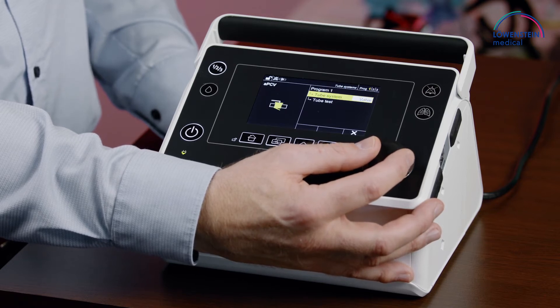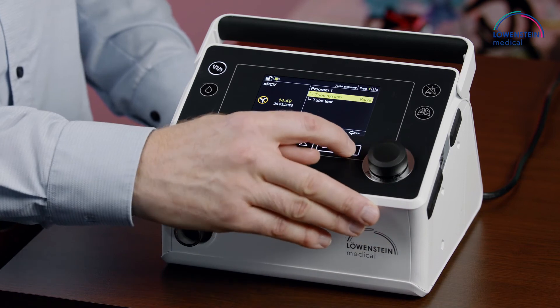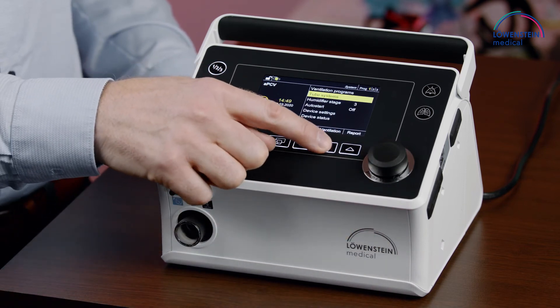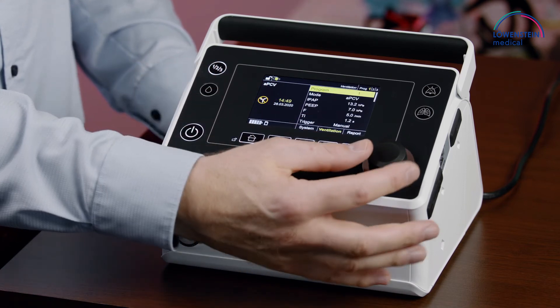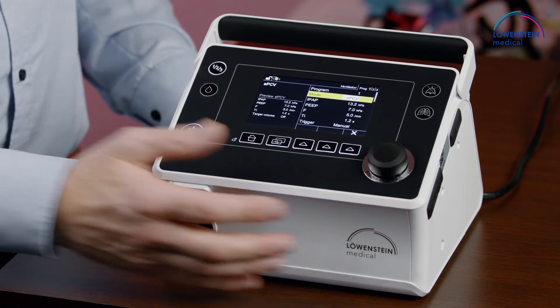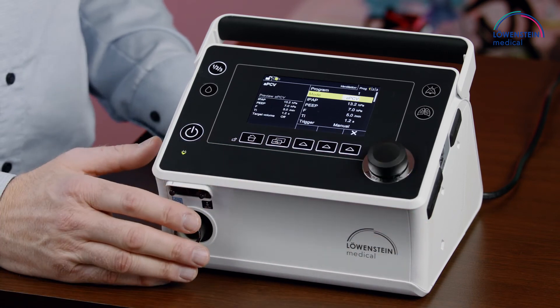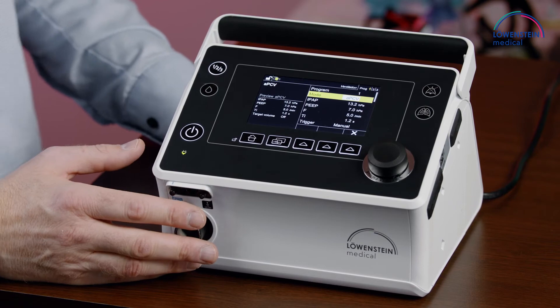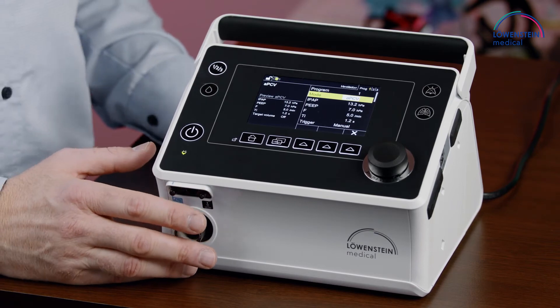Now we can go into the ventilation menu and have a look at the available modes. Starting with APCV mode — APCV is a controlled mode, but the patient is able to trigger inspiratory efforts.